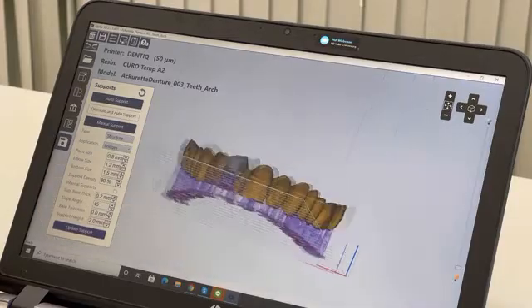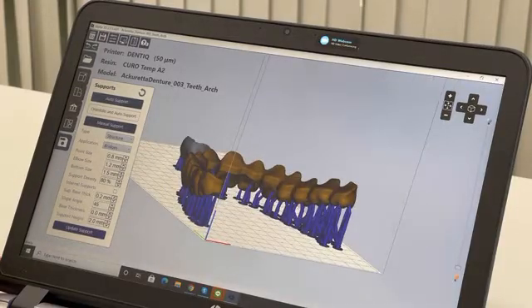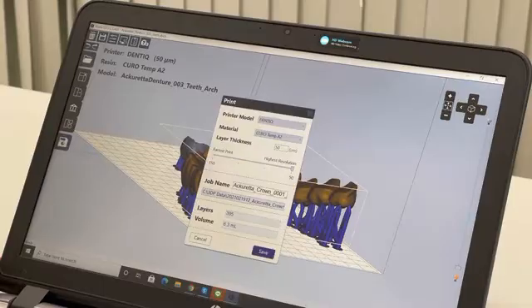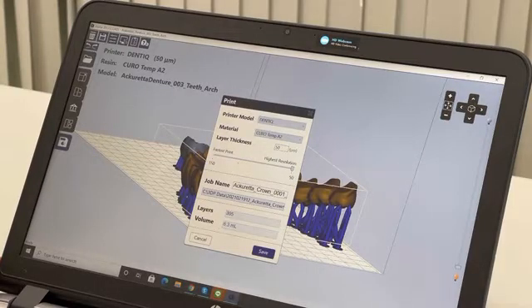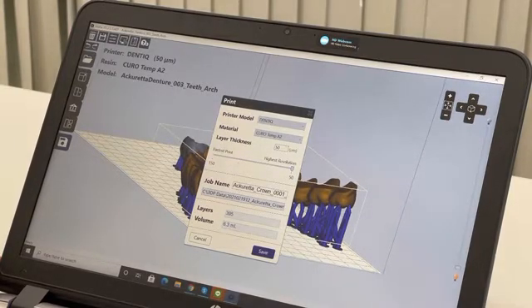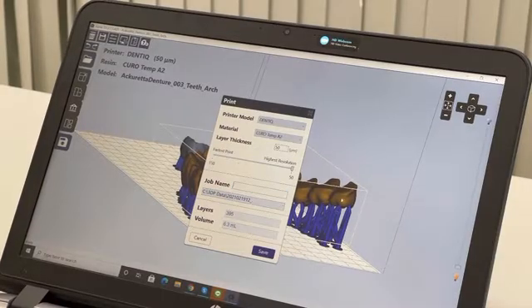I have all my supports ready, so it's very fast, very easy. Now I can just check all my parameters and change my project name.